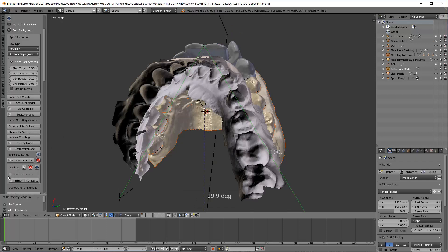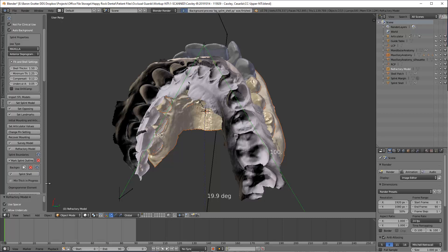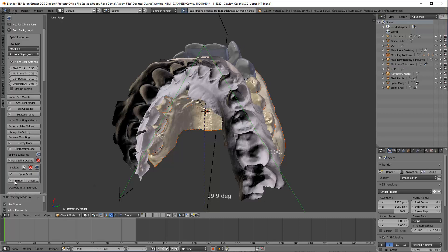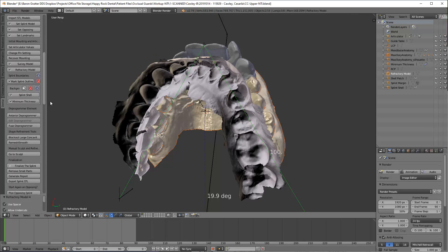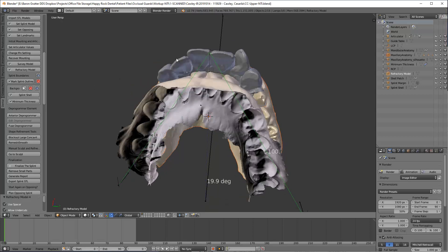So now, right now it is creating the shell. And then it's going to do the minimum thickness. It's doing this all on its own. It's in the background. We used to be forced to do this, to input things. But now it just happens on its own. You can make it not do that, but that's another deal.